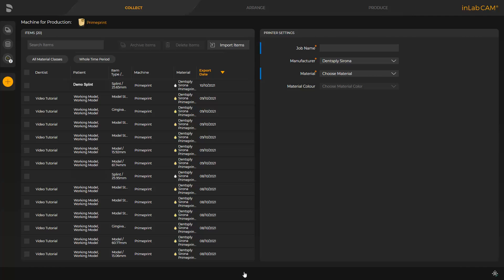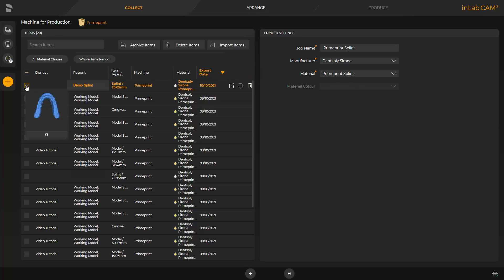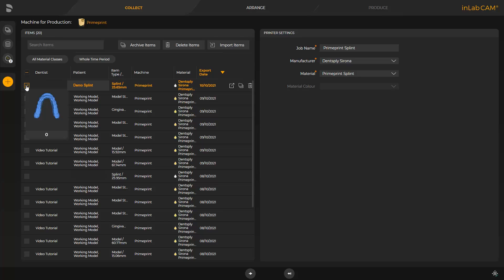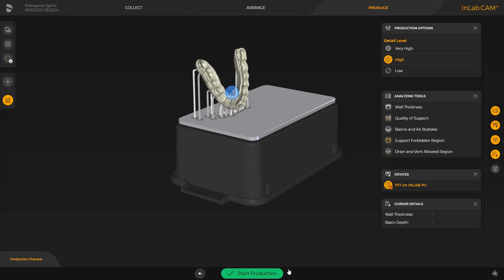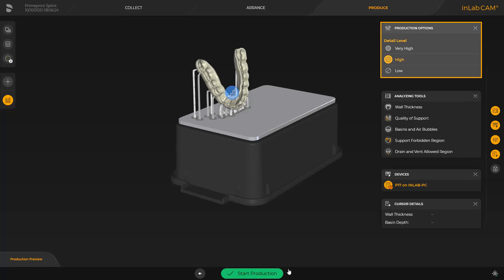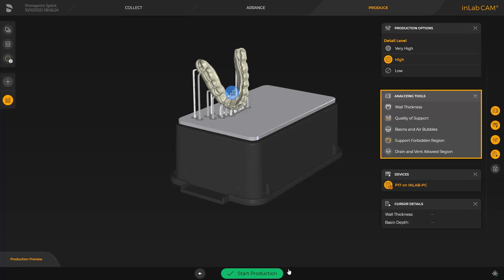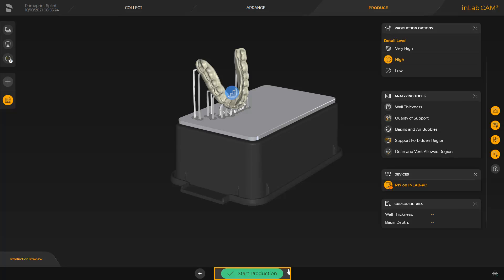When the InLab CAM software is opened, all cases previously transmitted are displayed. We select our splint and can either select the so-called Fast Track by tapping the double arrow, or we can switch to the next phase, the Arrange phase. Fast Track will take you directly to the last phase, Produce. In this case, the InLab CAM software automatically positions and orients the print object on the build plate and also defines the support structure automatically. We click the double arrow and can finally modify the detail level in the window under Production Options and analyze the print object with the Analyzing tools. To start printing, we tap the green area labeled Start Production.